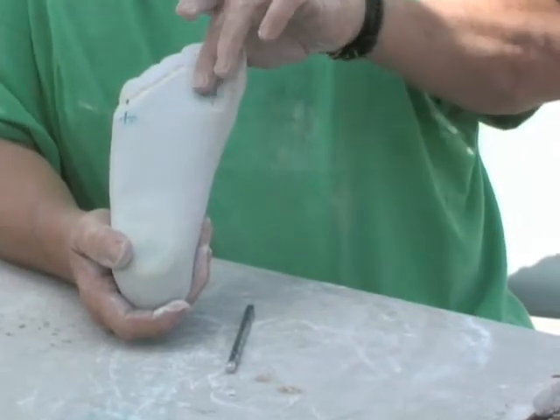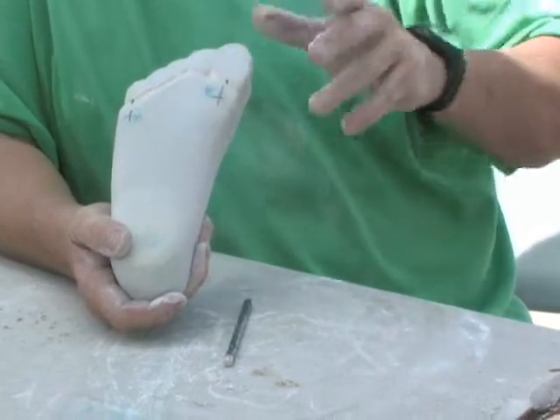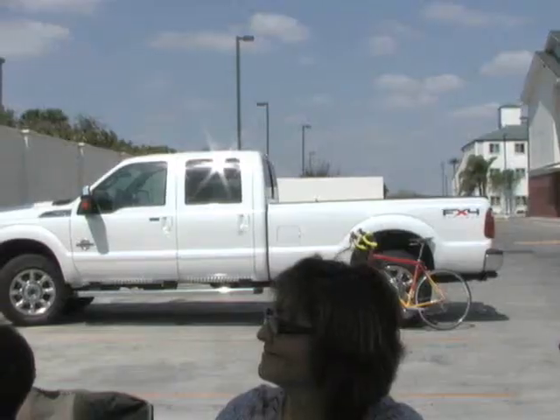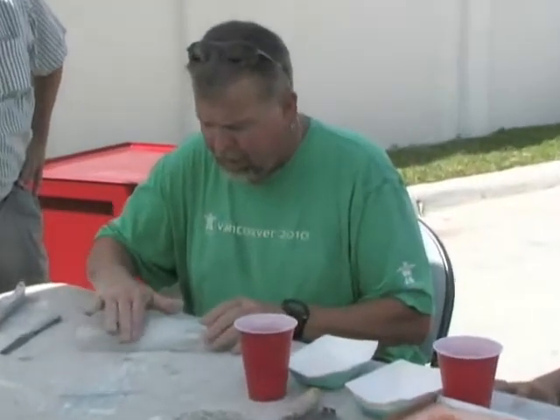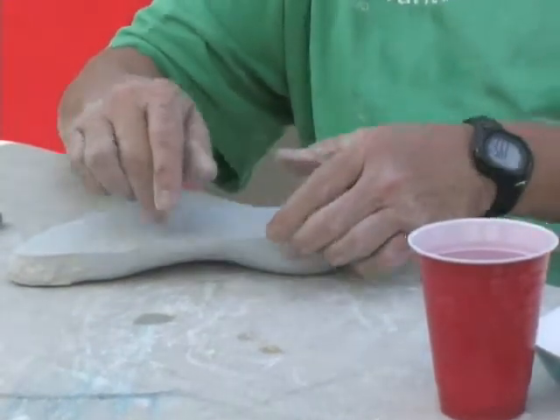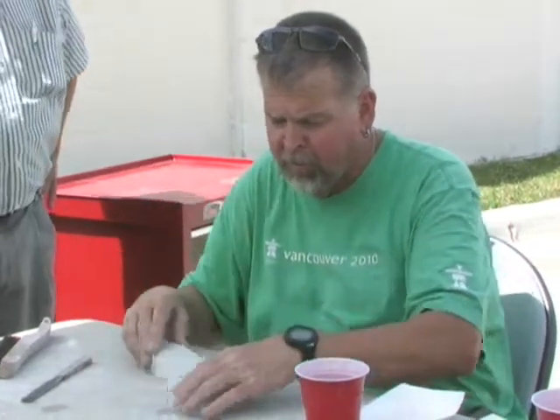I still have to sand this, so let me pass it around and then we'll resume. As I was telling him about the plaster — if there's a little bit of abruptness right here in the arch when it's turned over, this area is actually going to poke up into Laura's arch and cause her some problems. What I want to do is add a little bit of plaster, which will actually lower the arch. It's going to be to touch rather than a precise measurement.